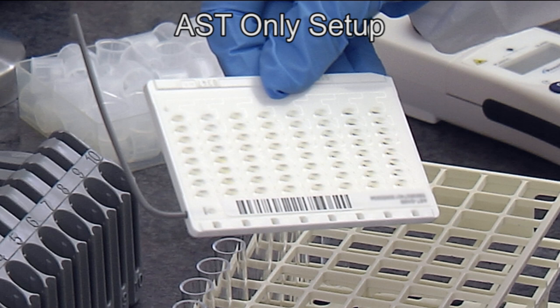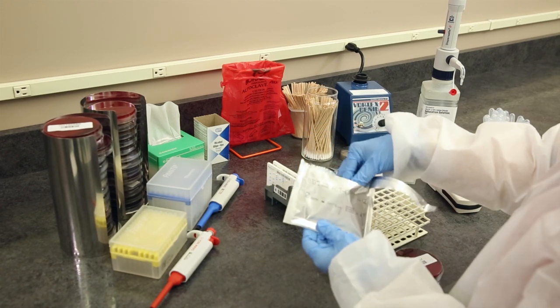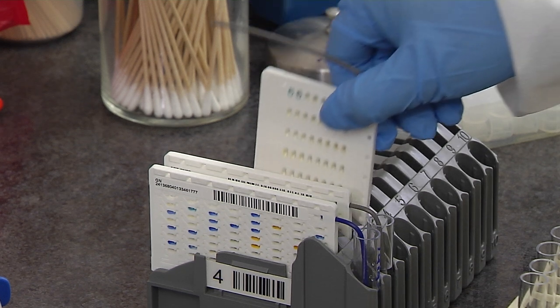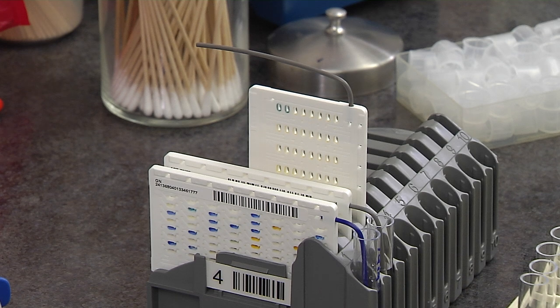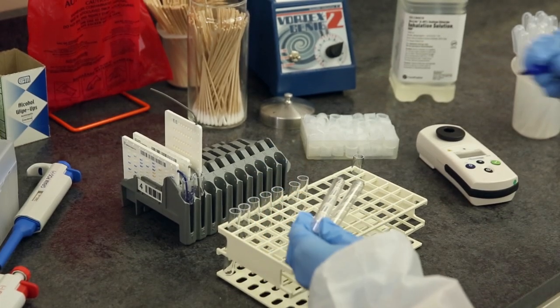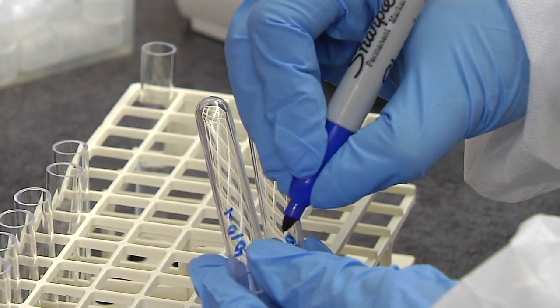The next isolate requires only a gram-positive susceptibility card. In situations where identification of an organism has been determined using another method, an AST card can be run alone. However, the initial organism suspension must still be prepared. Remove the room temperature AST test card from its foil pouch and place in the cassette standing on end with the transfer tube pointing away from you. If required by your standard operating procedure, label the top third of two 12 x 75 mm clear polystyrene tubes with the accession number.